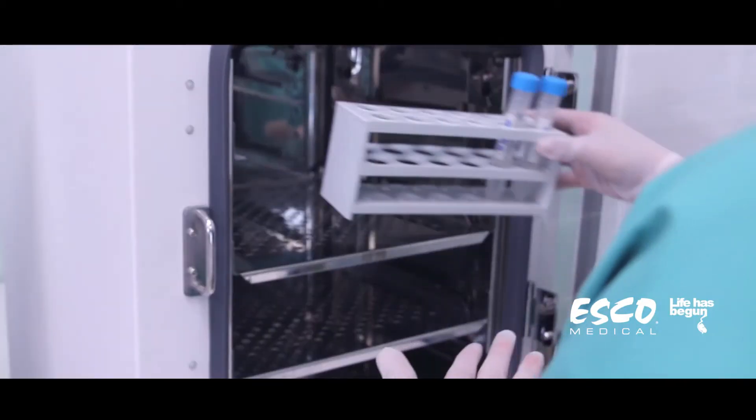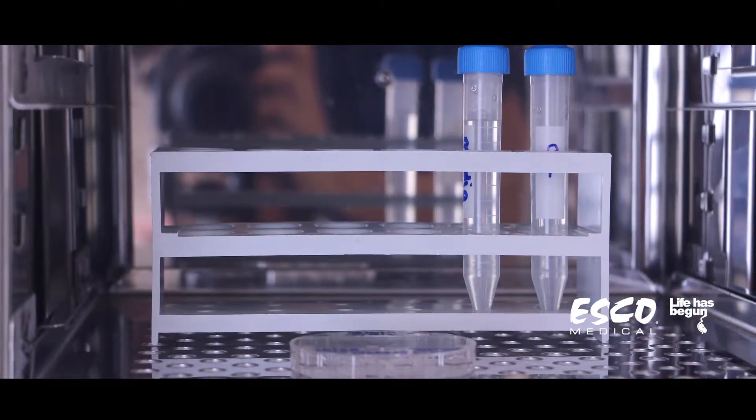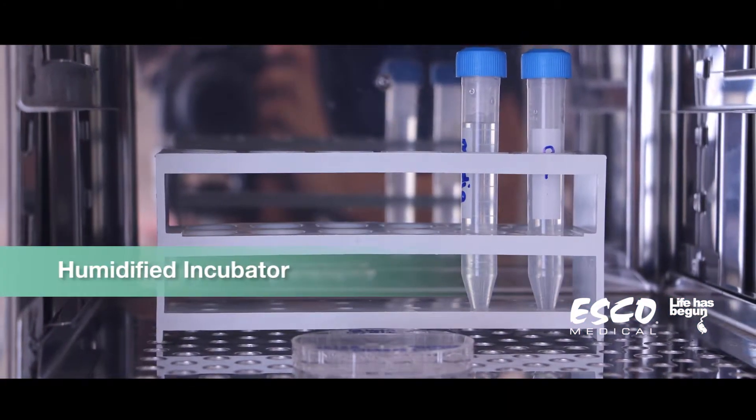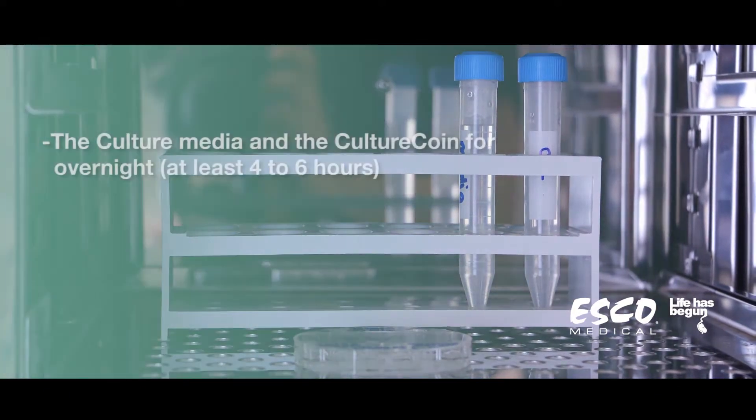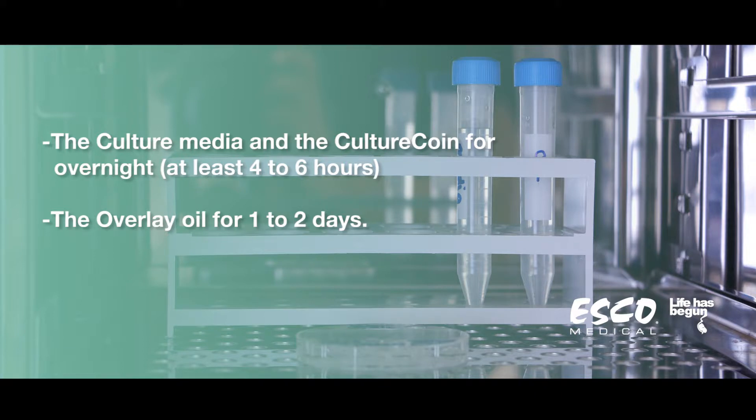Before loading the culture coin with the media and oil, see to it that you have pre-equilibrated the following inside a humidified incubator: the culture media and the culture coin for overnight and the overlay oil for 1 to 2 days.